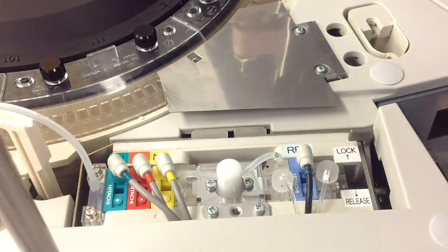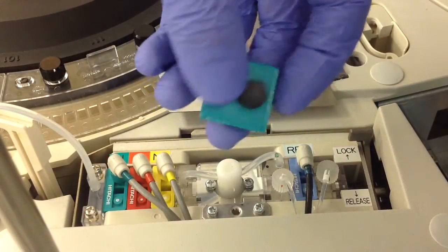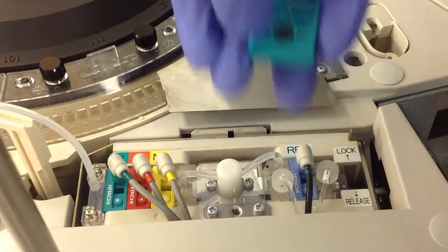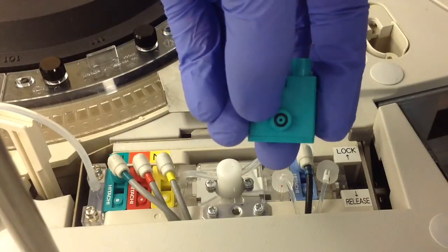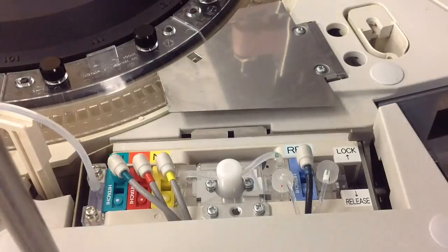All you need is three brand new measuring cartridges. When you're getting these ready to install, you need to remove the plastic caps on both ends. While removing those caps, it's important to note that the little black gasket is still seated in its area on one side.